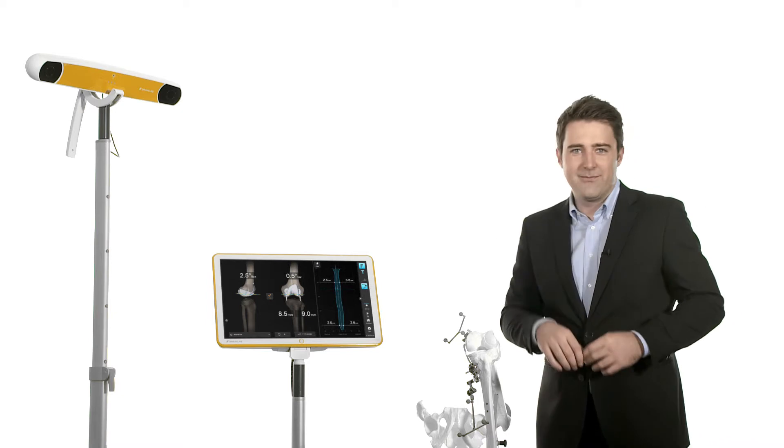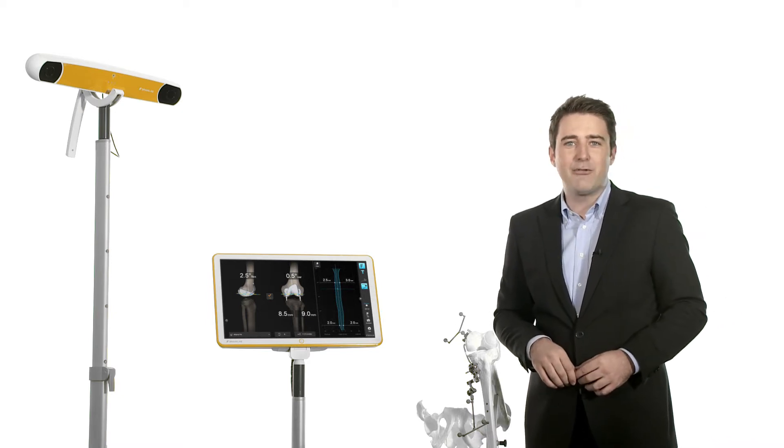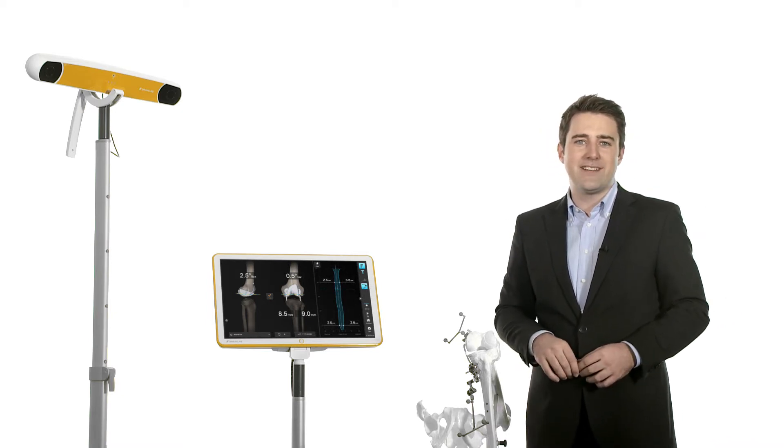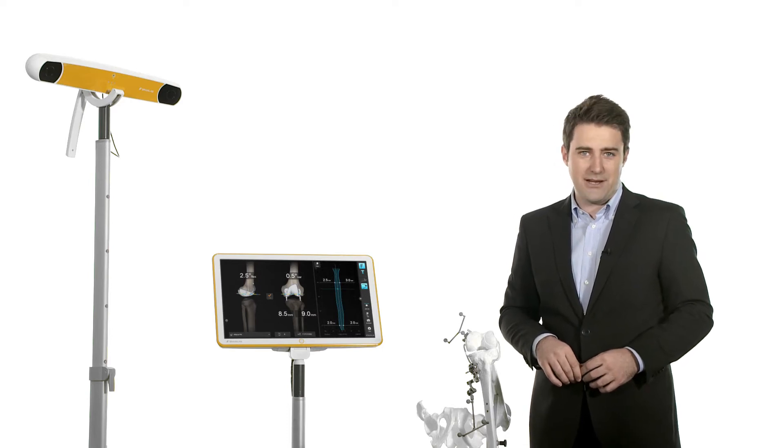This is Knee3. Knee3 is a completely new software that takes a different approach to addressing the current challenges of navigated total knee replacement.